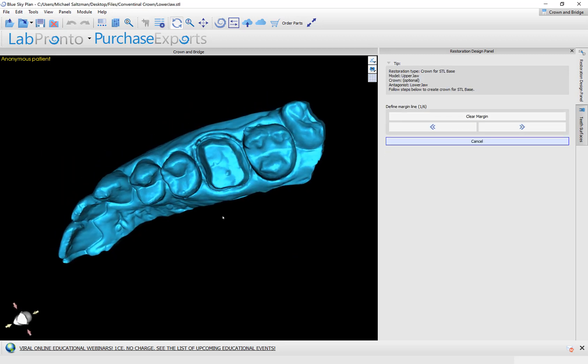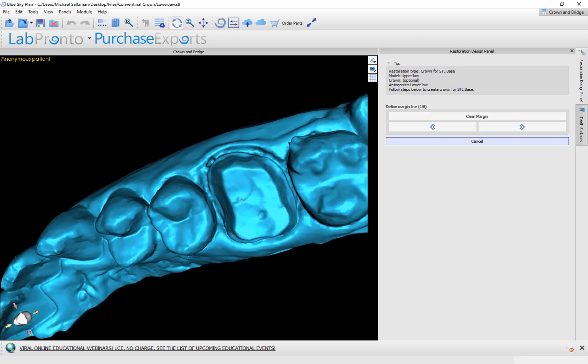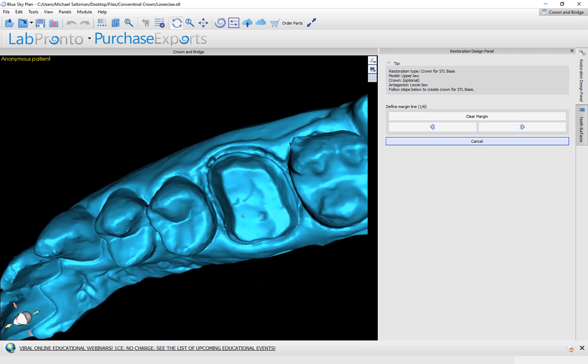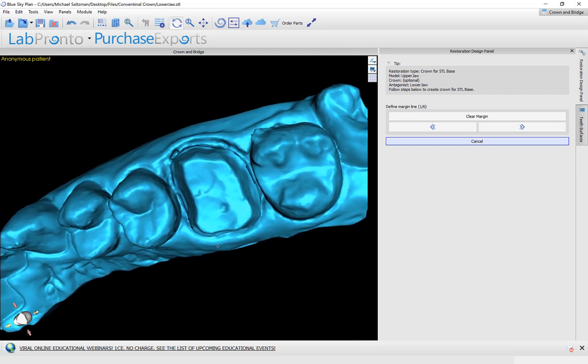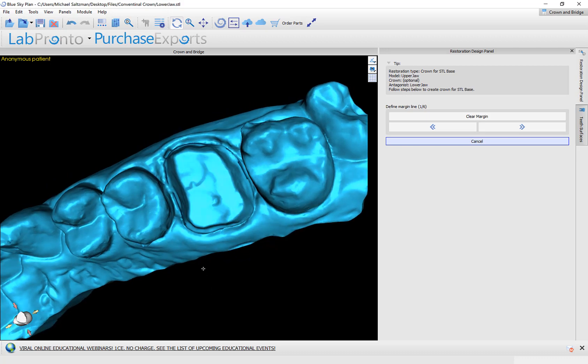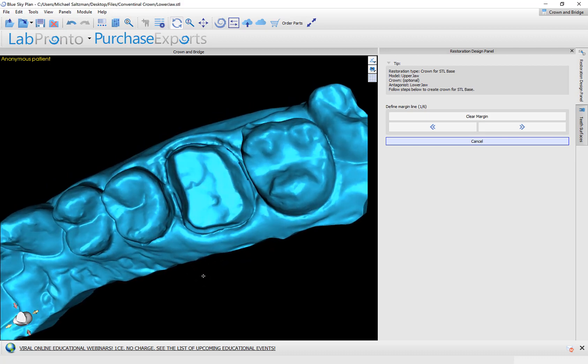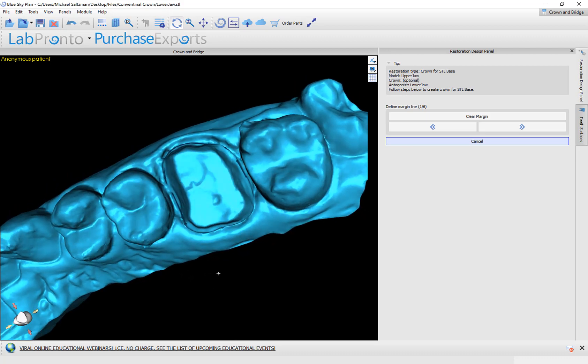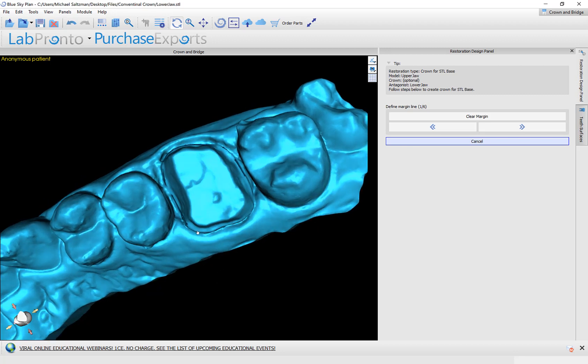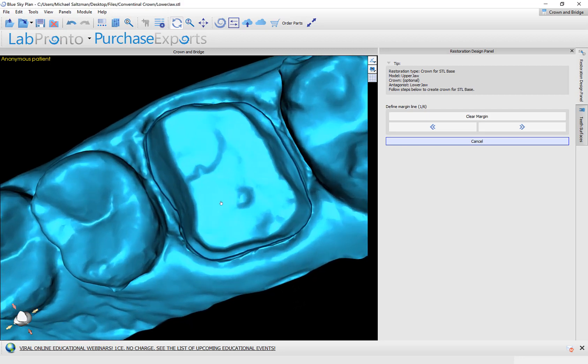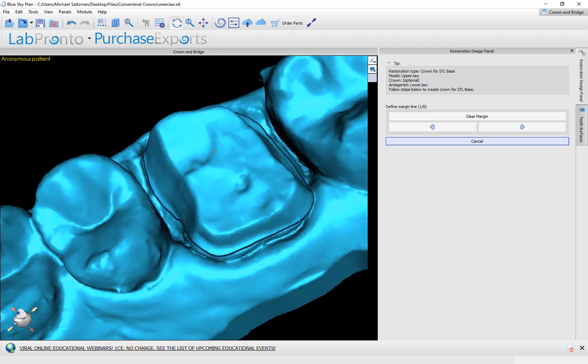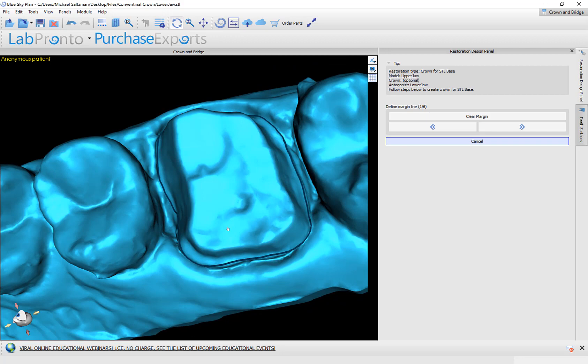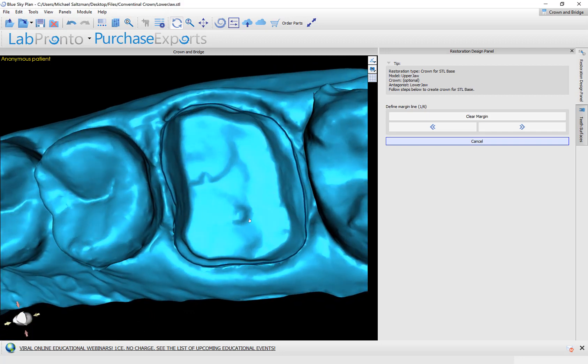The first step is to define the margin. That's simply done by holding down the shift key and clicking to place dots with your left mouse button. And as you place the dots, the software goes ahead and connects the dots creating the curve. I'm holding down the wheel of my mouse to grab and move the model, or I could rotate by holding down my left mouse button and dragging the mouse. I'm going to continue with the process of holding down the shift key and left clicking until I go all the way around. And when I get to the last point, I'm going to continue holding down the left mouse button and dragging it until it closes with the original dot that I placed. If I want to fine tune the placement of this curve at any point, I could simply hold down the shift key, left mouse button, hold and drag, and it will redraw the curve accordingly. Once I'm done drawing the margin, I press the next button.